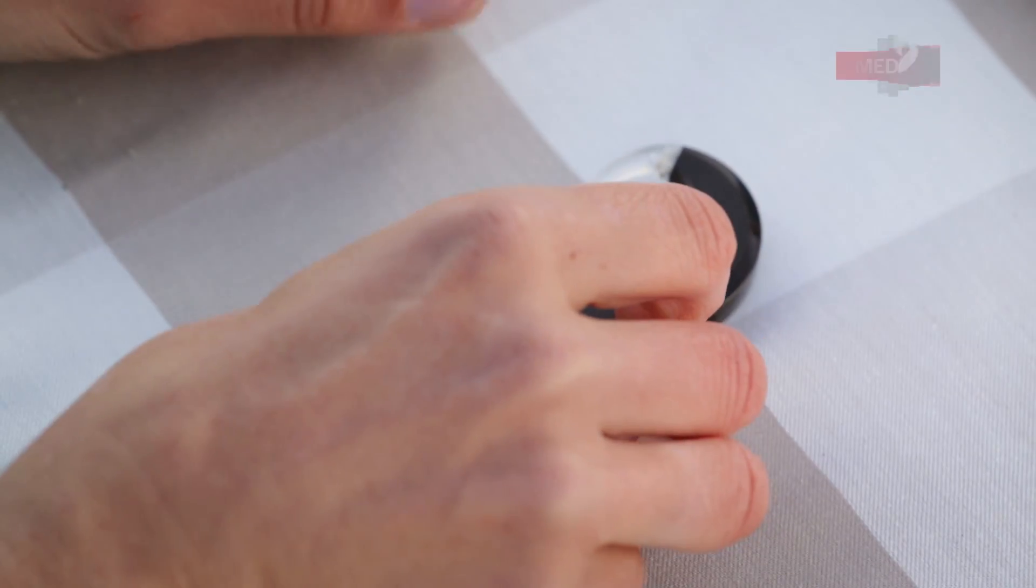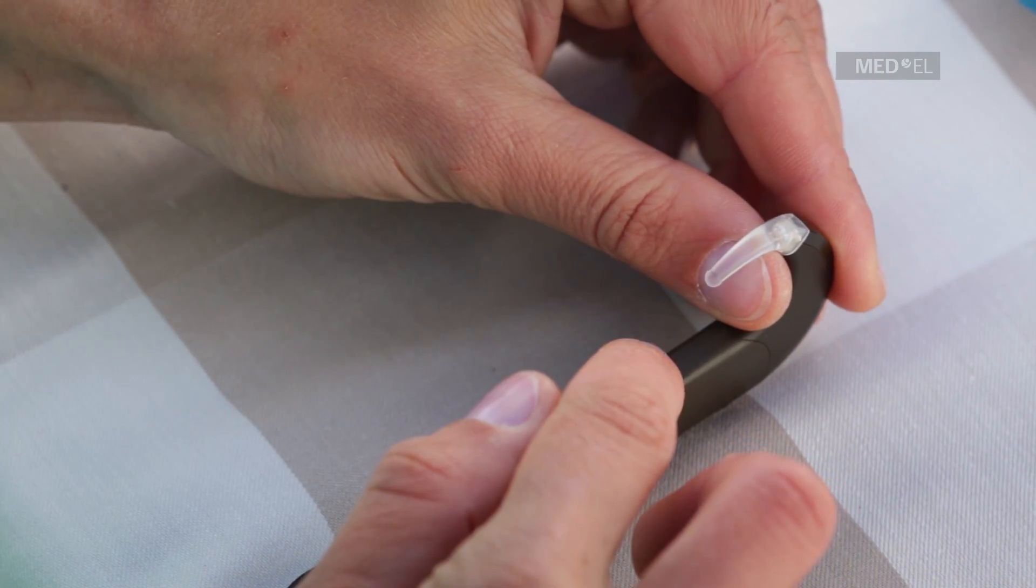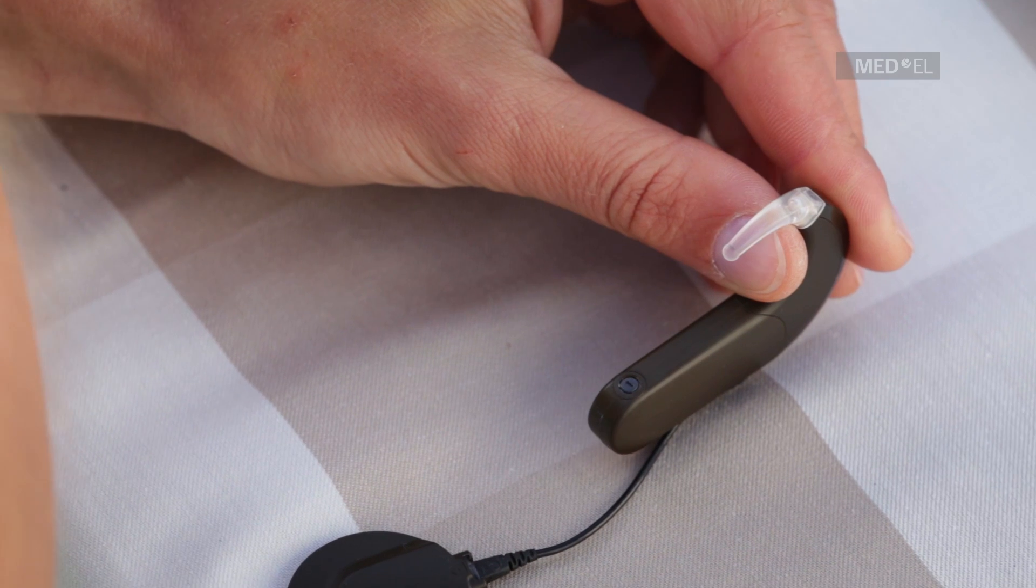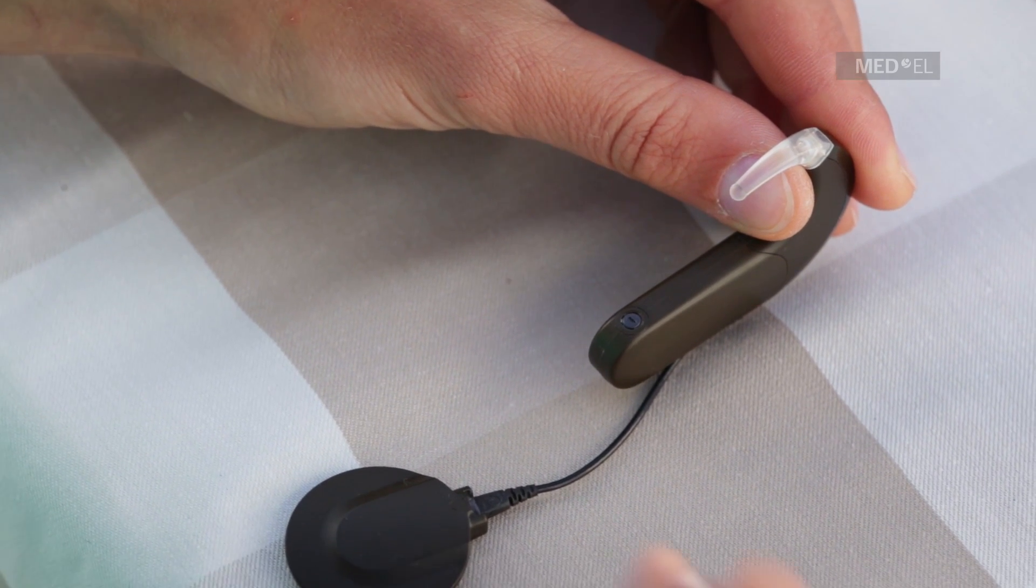To replace the batteries, first you'll need to remove the battery pack cover. Make sure that the battery pack cover lock is in the unlocked position.